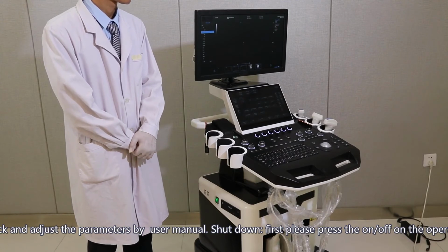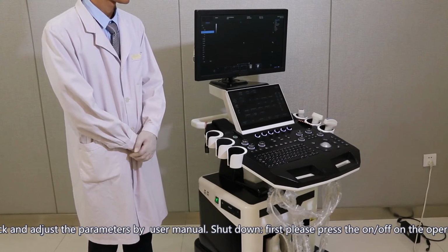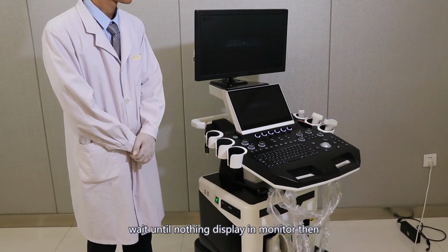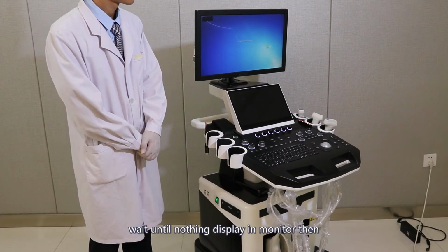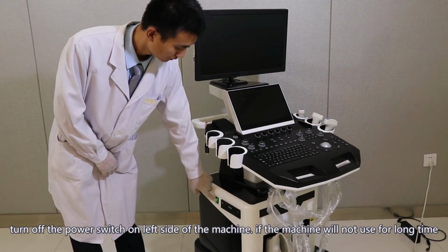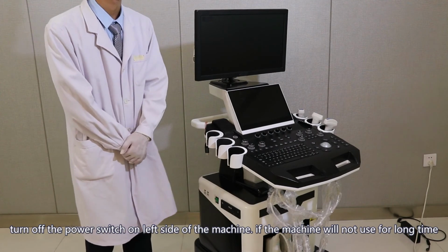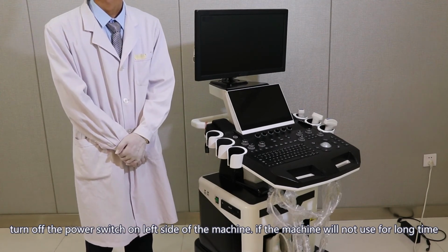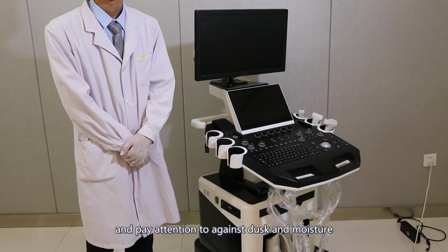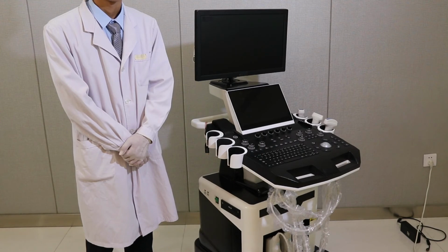Shutdown. Please press the on/off key on the operation panel. Wait until nothing displays on the monitor. Then turn off the power switch on the left side of the machine. If the machine will not be used for a long time, please disconnect the power cable and guard against dust and moisture.